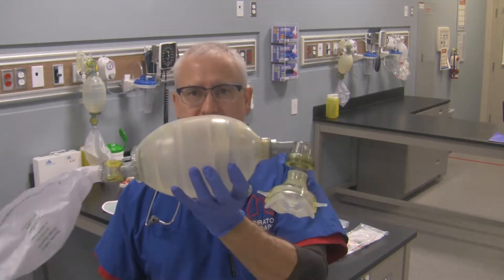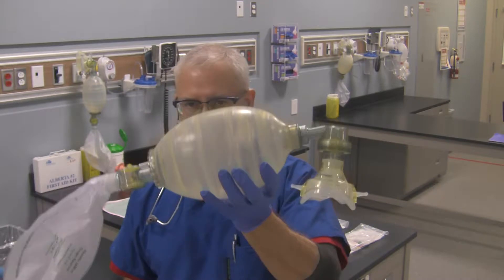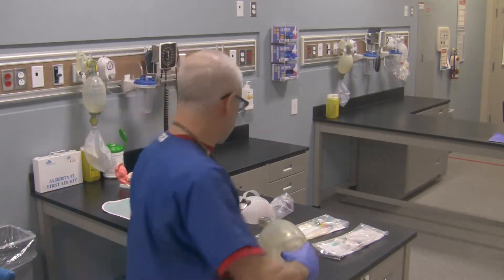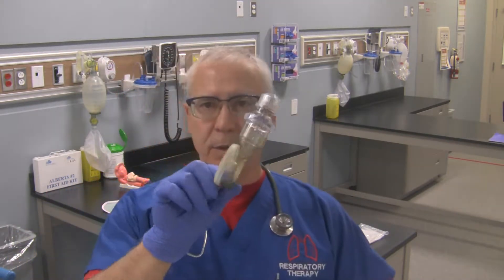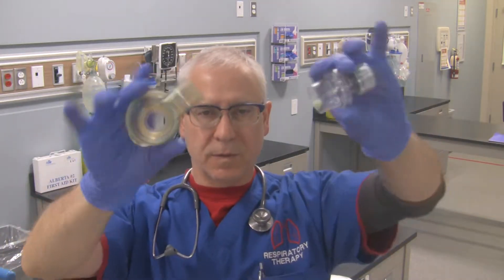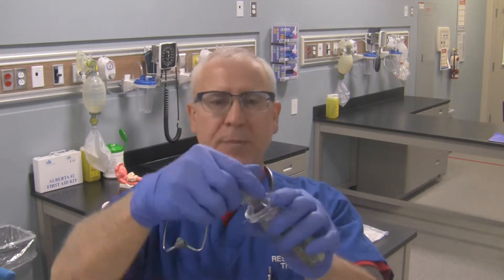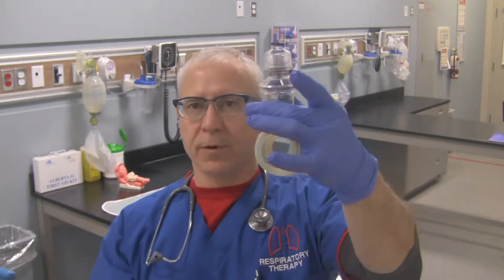Some of the things that you need to switch over from bag valve mask to bag valve tube — and this is what we do in our specific area — you're going to need a PEEP diverter if you need one for your bagger, as well as a PEEP valve. These come apart, so if they're apart you might have to place them together. Have the PEEP set to whatever level you want for your patient.